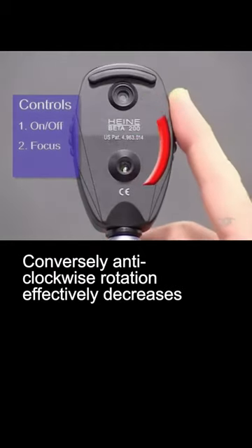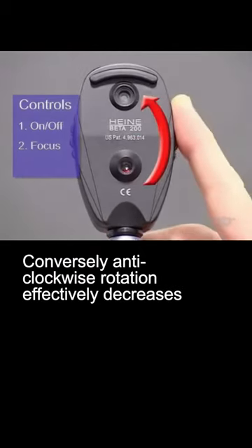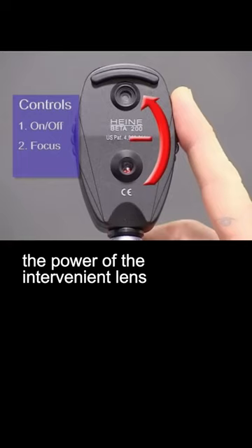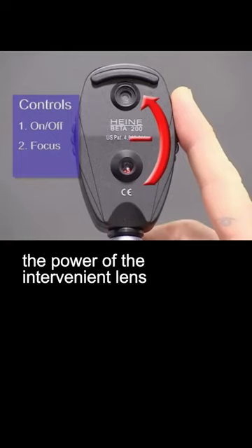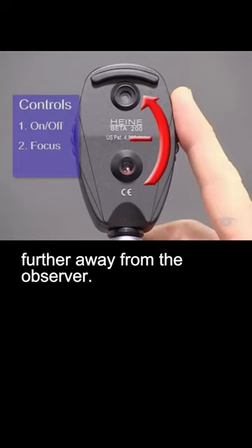Conversely, anti-clockwise rotation effectively decreases the power of the intervening lens, which moves the focal point further away from the observer.